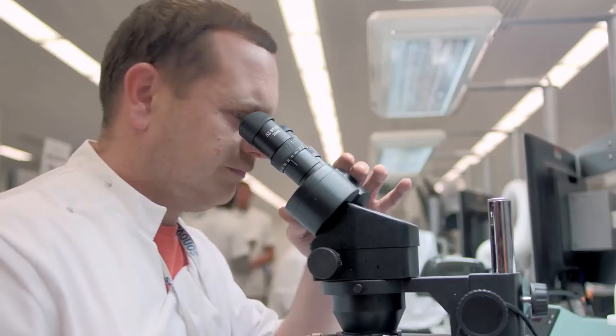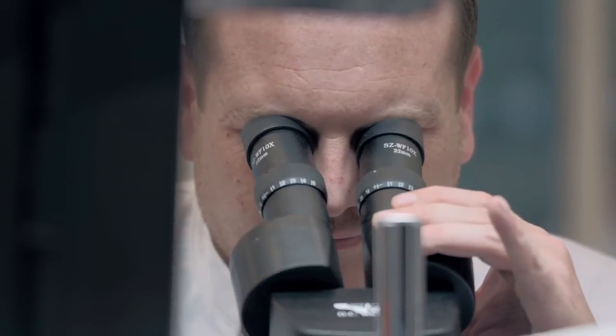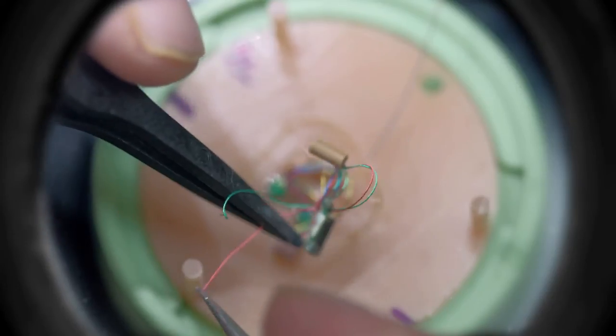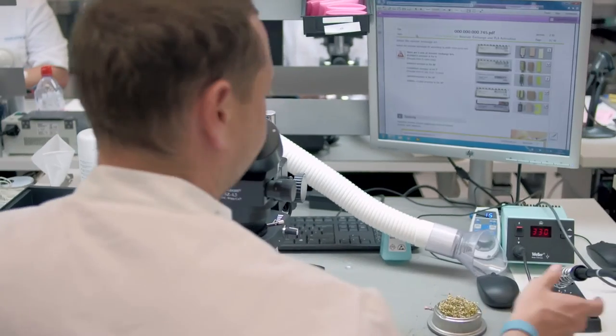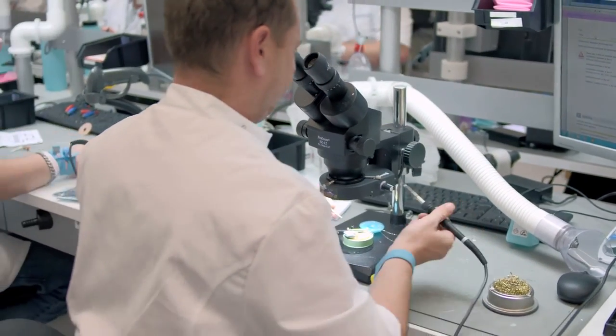I'm Scott Myler and I do kit prep. Kit prep is to prepare the face plate ready to be inserted into the ITE. Dexterity is a big part of my job. You have to have a good eye for detail really. Some of the wires are as small as a human hair. It only has to be out a millimeter on solder or a wire just slightly out of place and it goes straight back through the line. The processes to get the work done are followed to the letter every single time.